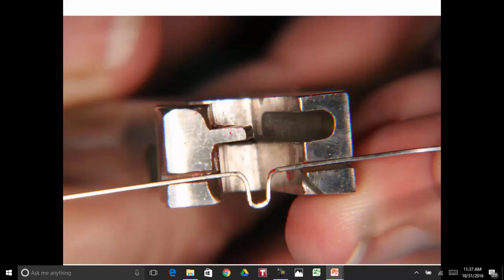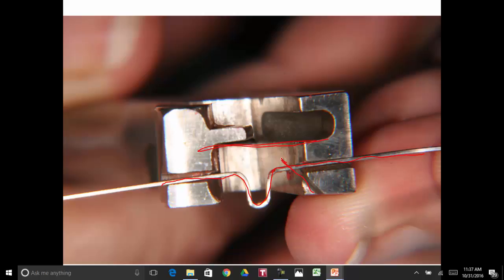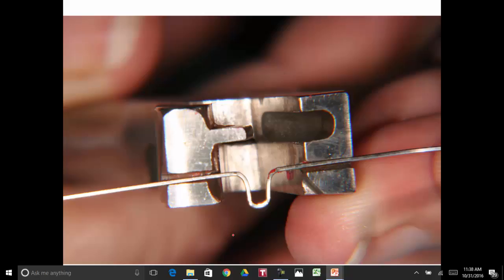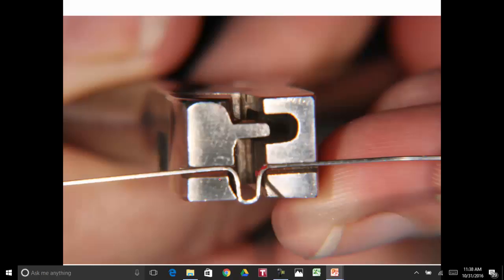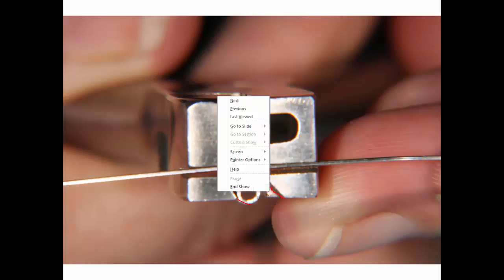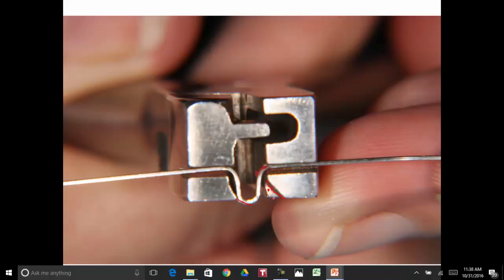There it is. We put the wire in here. We've got the omega coming down, coming out here, and now we're going to close this together. This slope is cut out right there, and there's a slope over on this side. Now, as you squeeze this together, your omega is going to take a turn kind of like this, except it'll be squeezed together pretty close at the base. We close that together. There it starts. You'll see this will bend this over. This is free right here. As we do that, this thing will fit into that spot right there.